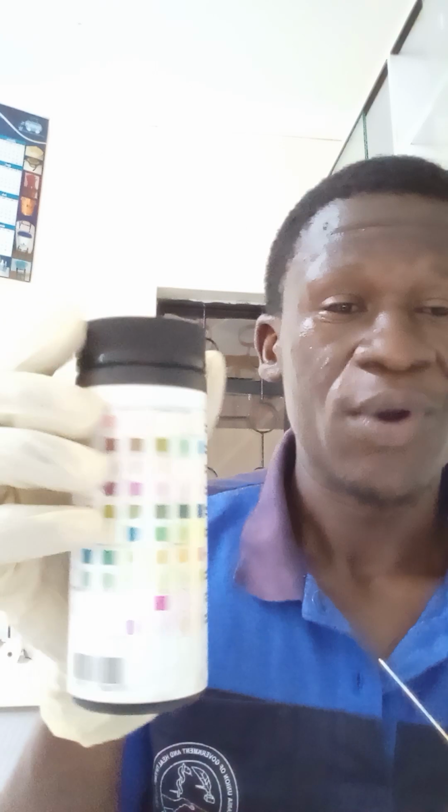You make your comparison of the strip against what we have. This is our table, having the results, the result scores. You place it carefully against this, and then you start reading. One, urobilinogen, you'll read that. You'll go to glucose, you'll read bilirubin, you'll read ketones, you'll read specific gravity, you'll read blood, you'll read pH, you'll read proteins, you'll read nitrites, and finally leukocytes.